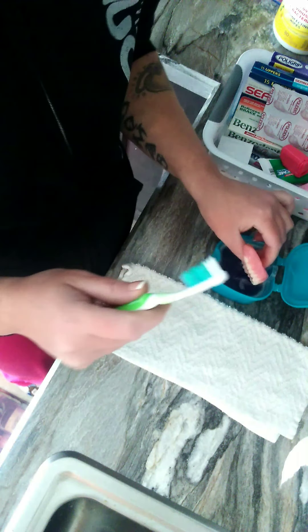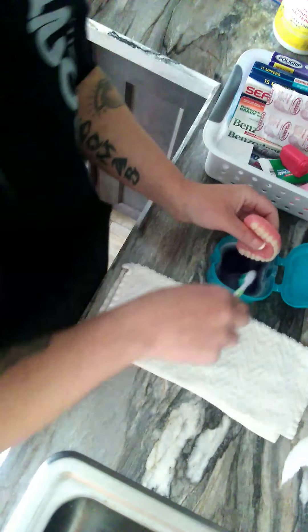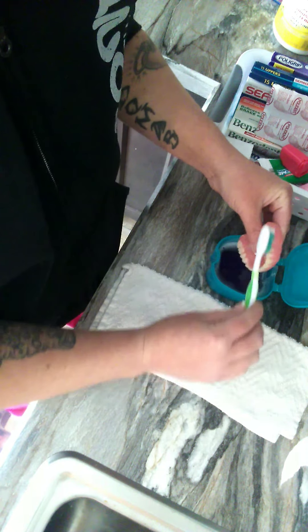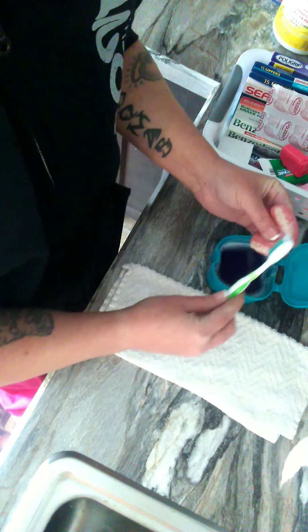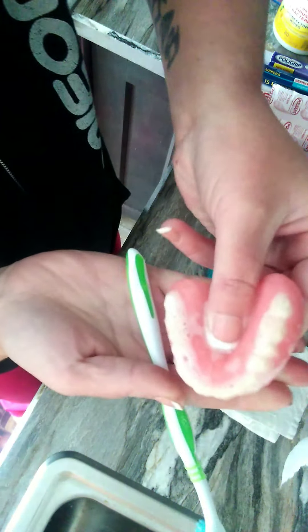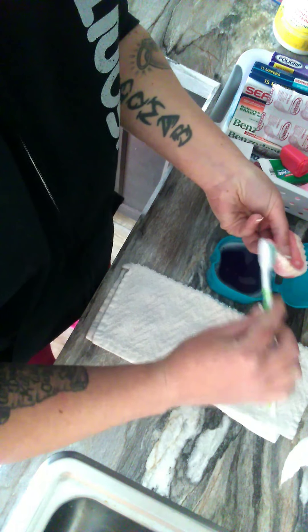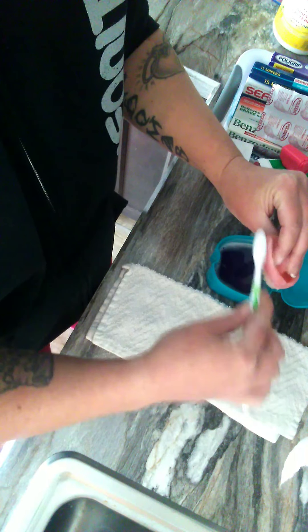What I do is I use my soft bristle brush, and I dip it in here. It even says to scrub it after it's done soaking. It gets in between the teeth, it gets in between everything — it doesn't just sit. So you're just spreading around the solution. I like my stuff clean, so you want to clean it nice and well. Get in between the frenulum part, get on top.